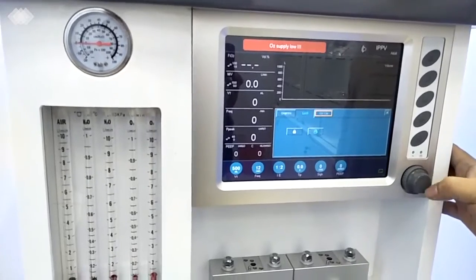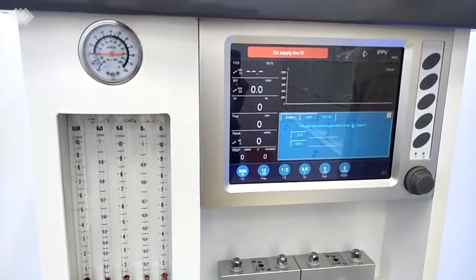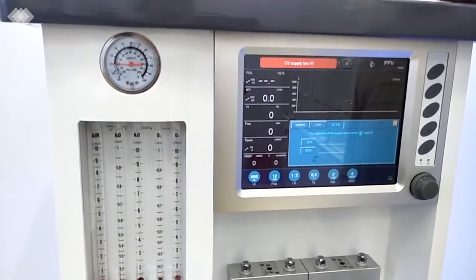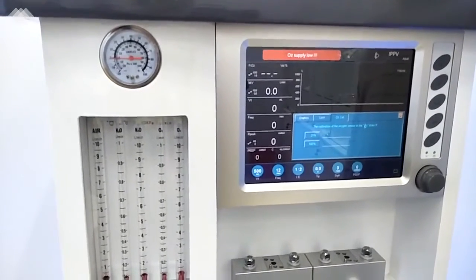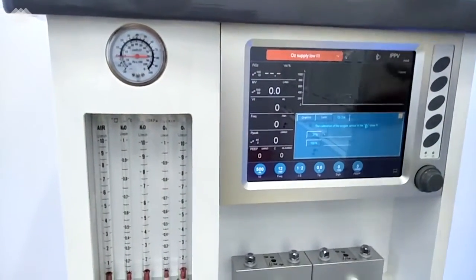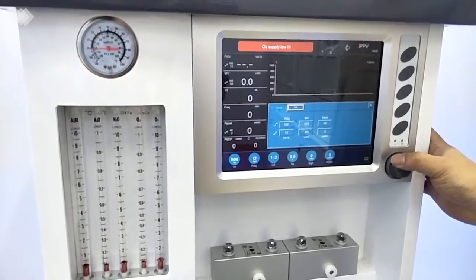And the third one here is for the oxygen calibration. For all our machines, we have the oxygen calibration. Before the machine is shipped, we do the calibration in China, in our factory. But we know that in different countries the oxygen concentration in the atmosphere is actually different. So that's why I mentioned that, before you use the machine, you only need to do it one time at 21% and 100%. And also in the installation video, we have the steps to teach you how to do it. Very easy.